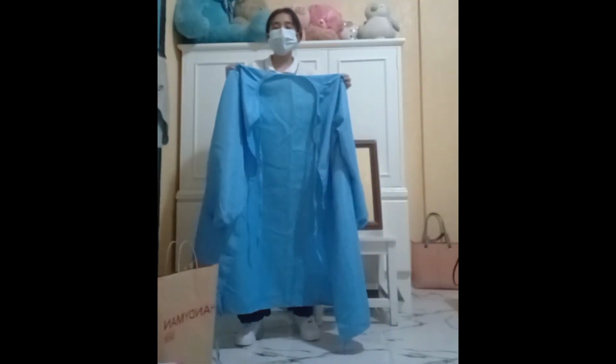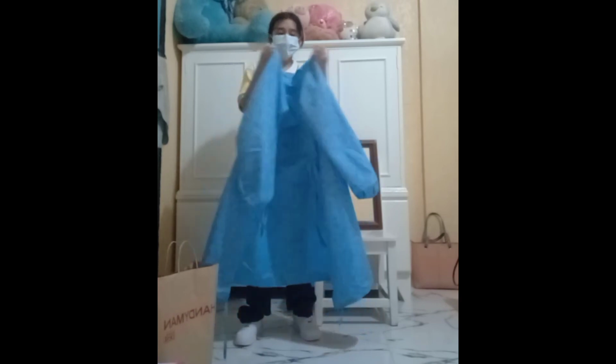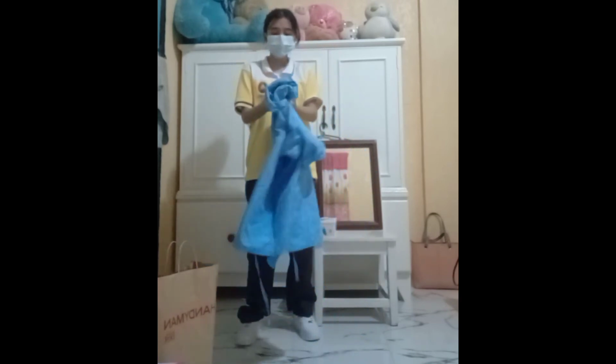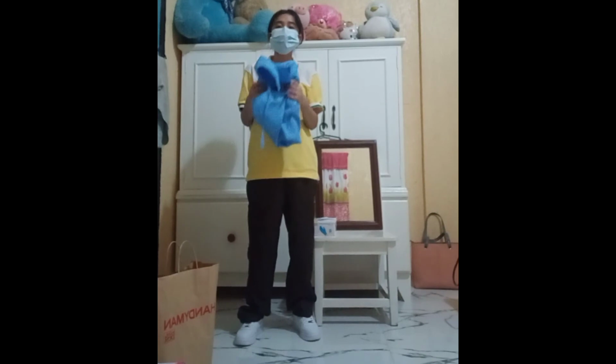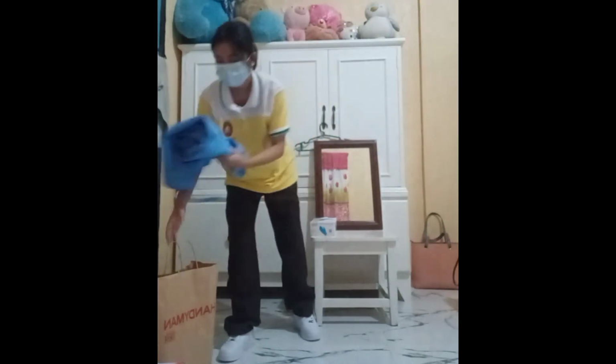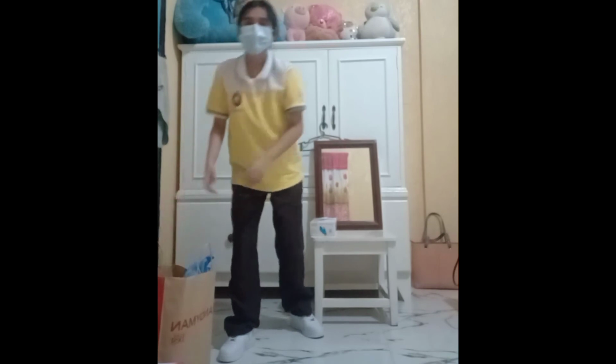After that, roll up the gown with the shoulder part inside and discard it in an appropriate container. Remove the mask at the doorway to the client's room. If you are using a respirator mask, remove it after leaving the room or closing the door. If you are using a string mask, untie first the lower strings of the mask. Now I am going to remove my mask from my face.